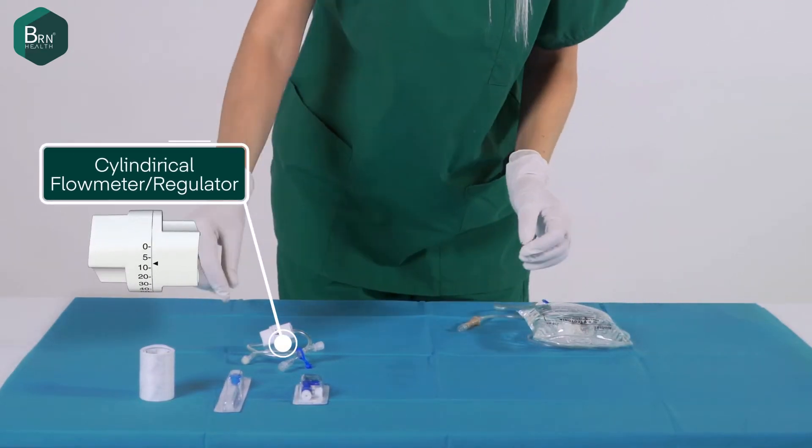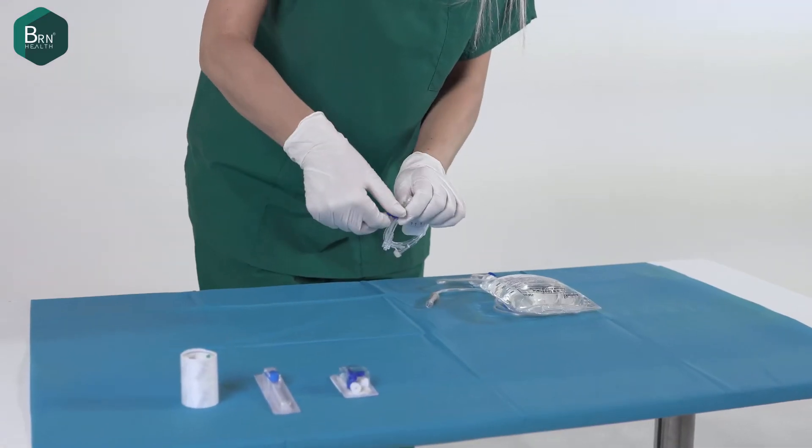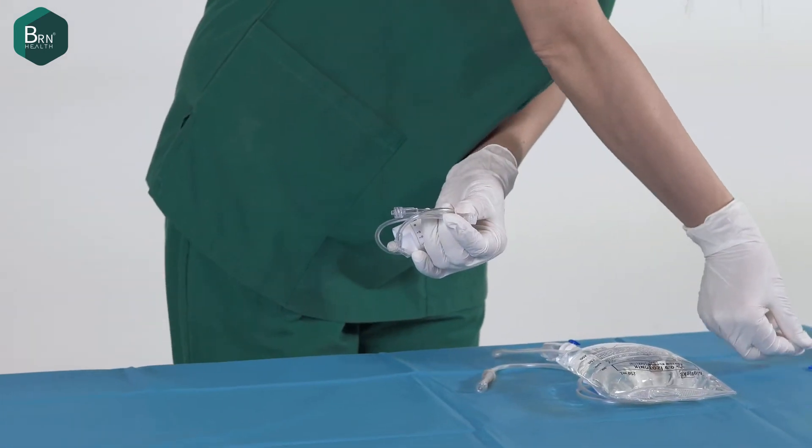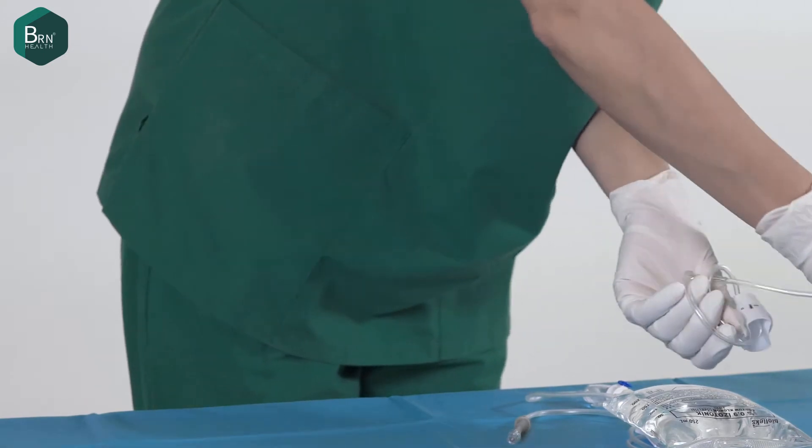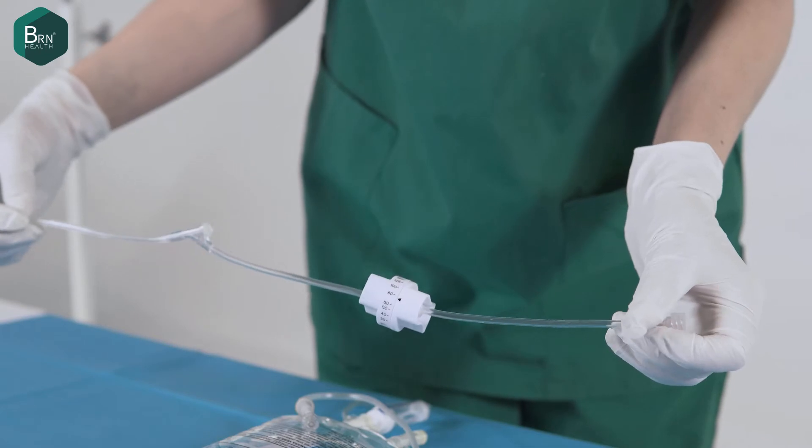Cylindrical IV flow controller is used for adjusting the speed of the infusion flow in vitro. Cylindrical IV flow controller is needed for controlling the flow of infusion fluids of pediatric patients, critical drug infusions, and during anesthesia.